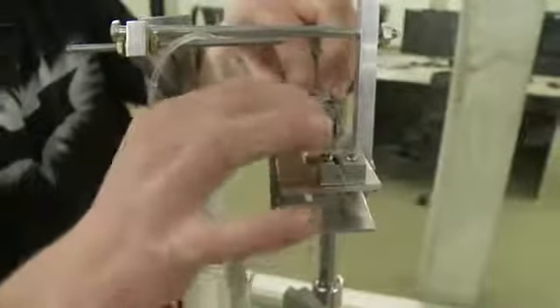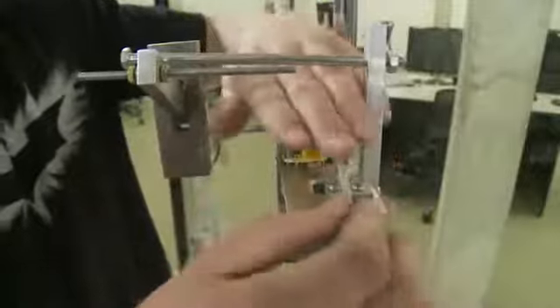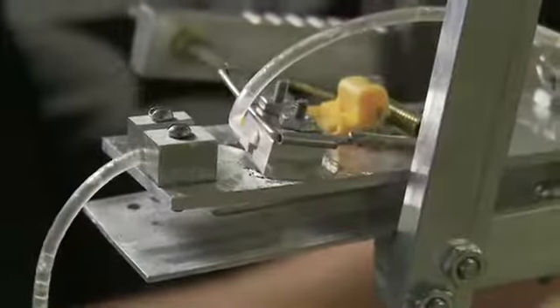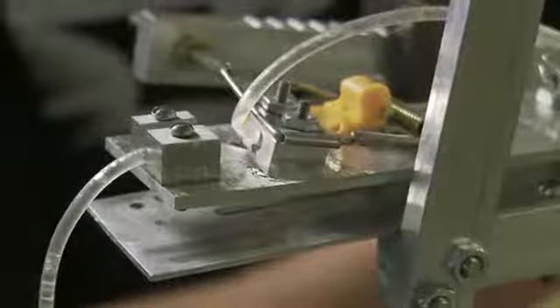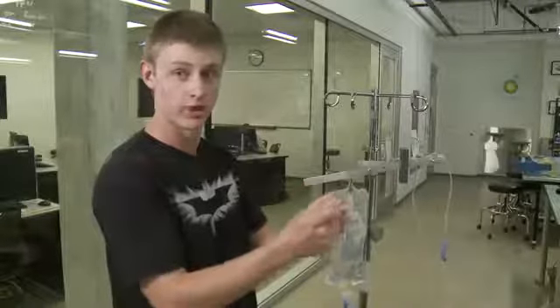Now they set the clamping mechanism, just like they would a mousetrap, and press the IV tubing into these tube holders. They can now start fluid flow and walk away. Once the appropriate amount of fluid has been dispensed, the scale will tip, striking the clamping mechanism, which then takes the IV tubing and folds it into a V-shaped kink. This V-shaped kink stops fluid flow just like crimping a garden hose might.